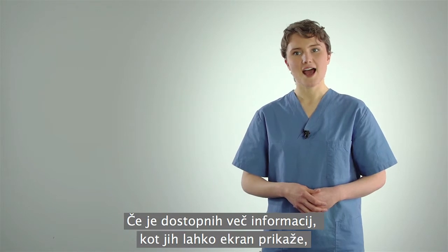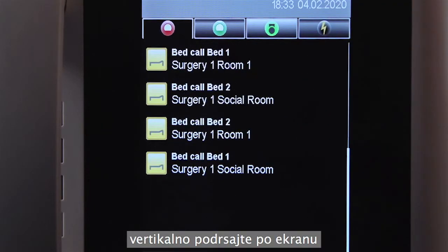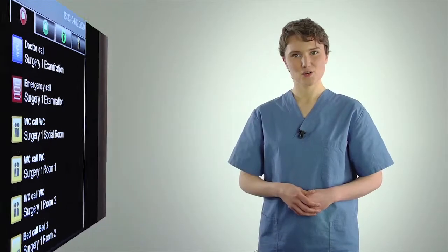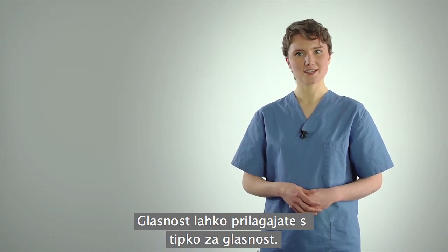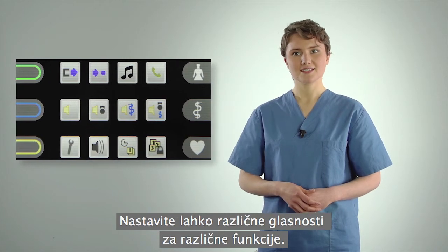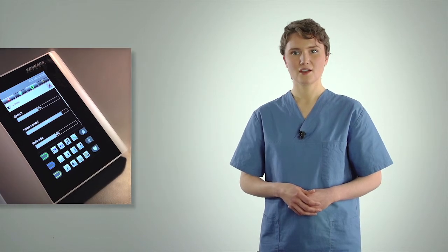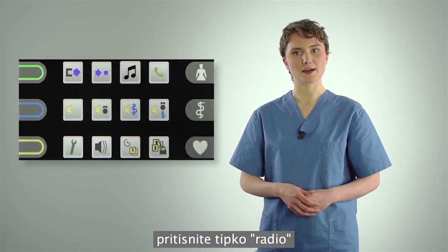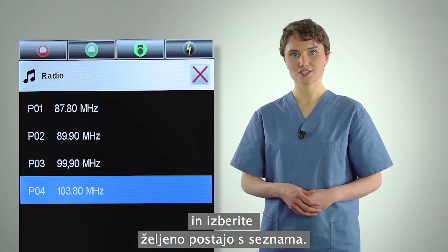If more information is available than can be displayed, swipe vertically on the display to see more information on the next page. To adjust the volume to your needs, press the volume function button. You can set different volumes for various functions by swiping. To listen to a radio program, press the radio button in the functions area and select the desired station from the list above.